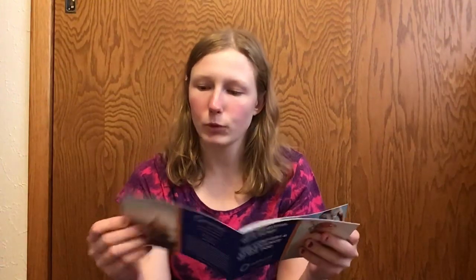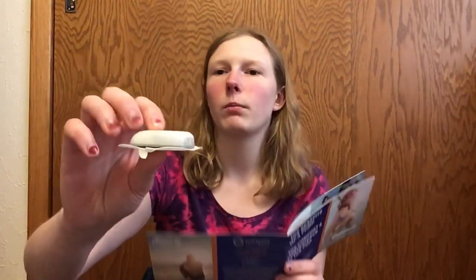They give you a bunch of guides and information in the pod experience kit. The pod is 1.53 inches wide by 2.05 inches long and about 0.57 inches high — so roughly an inch and a half wide, two inches long, and a half inch high. It's very small. The Dexcom G6 is just a little bit thinner than the pod, but obviously the pod needs to hold insulin so it has to have some thickness to it.